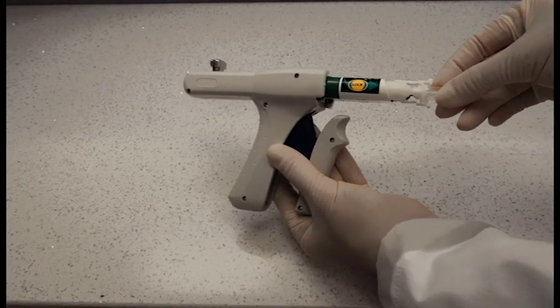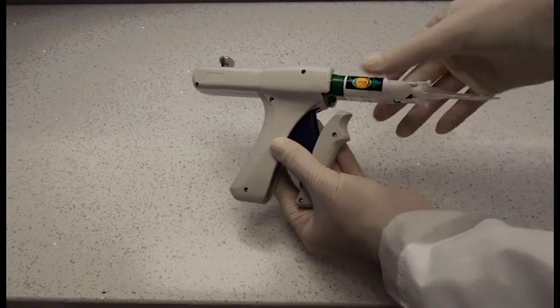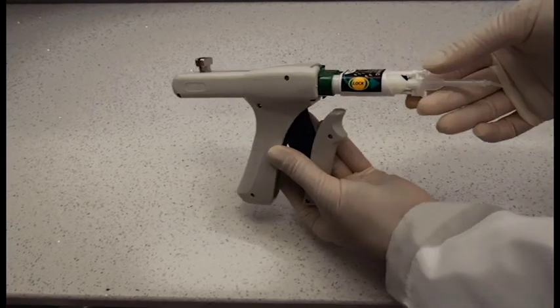Now lock the syringe tip in place, press it all the way, lock the cartridge, and you're now ready to go.